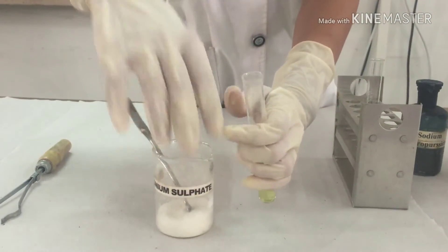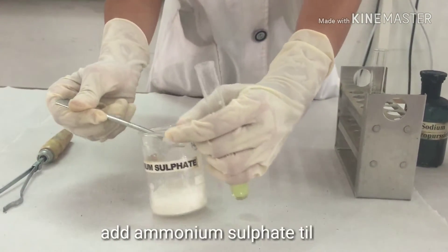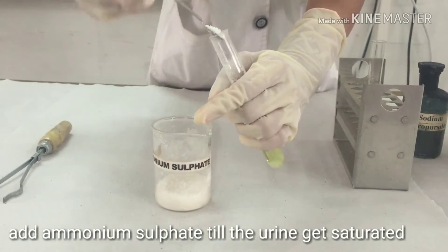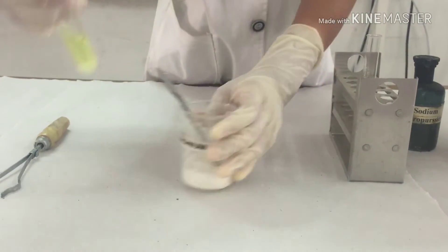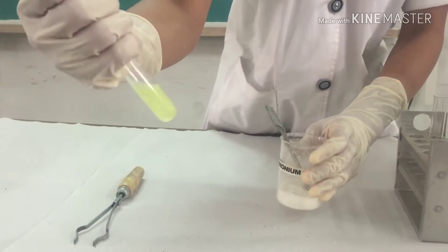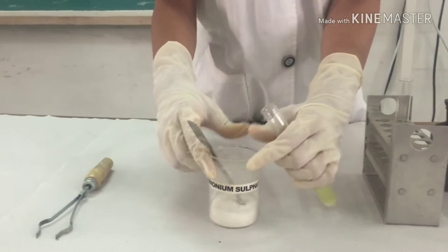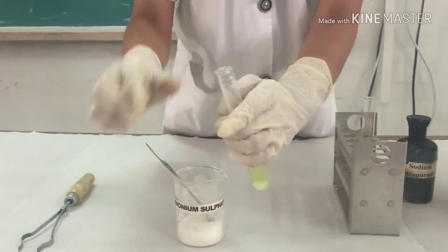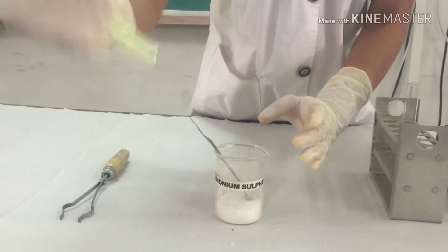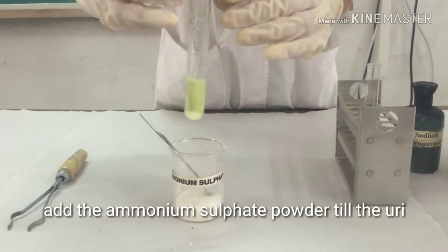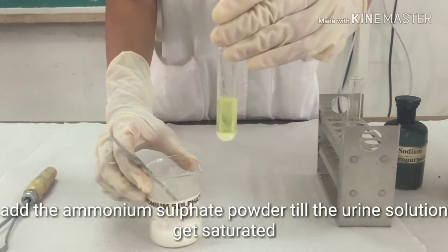Now add ammonium sulphate until saturation. We see the solution is now saturated.